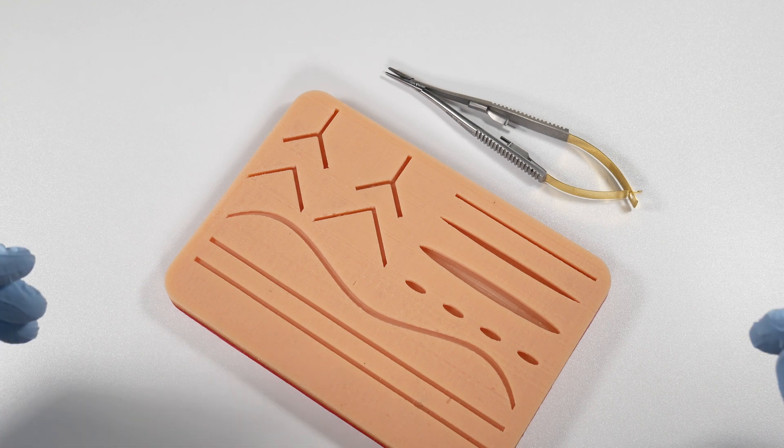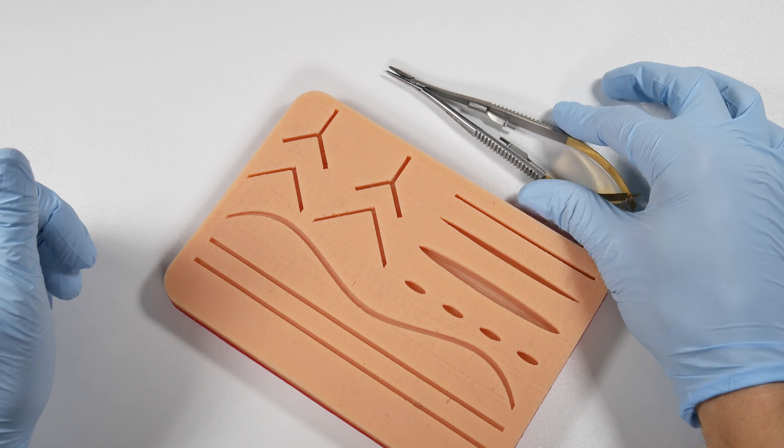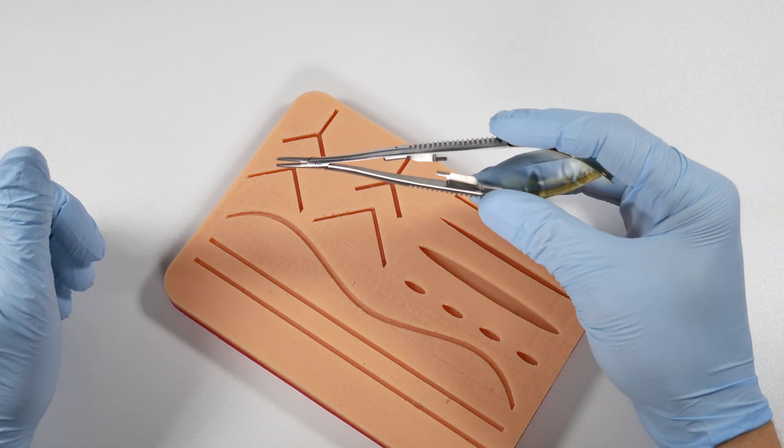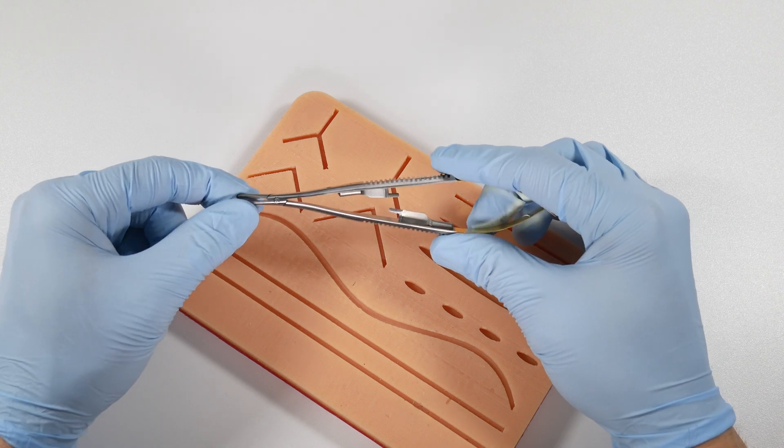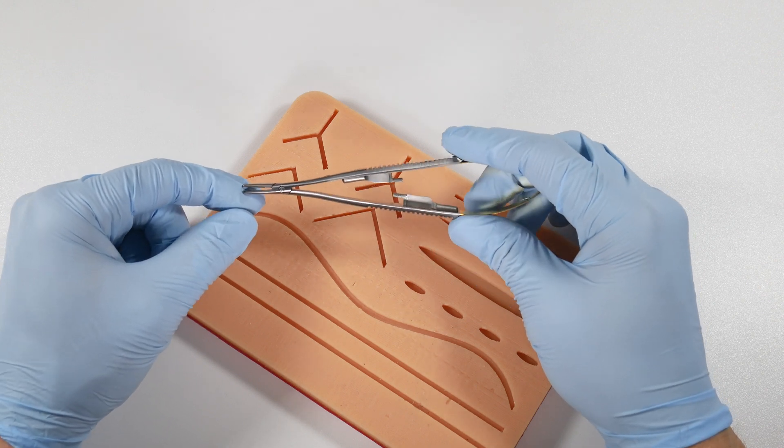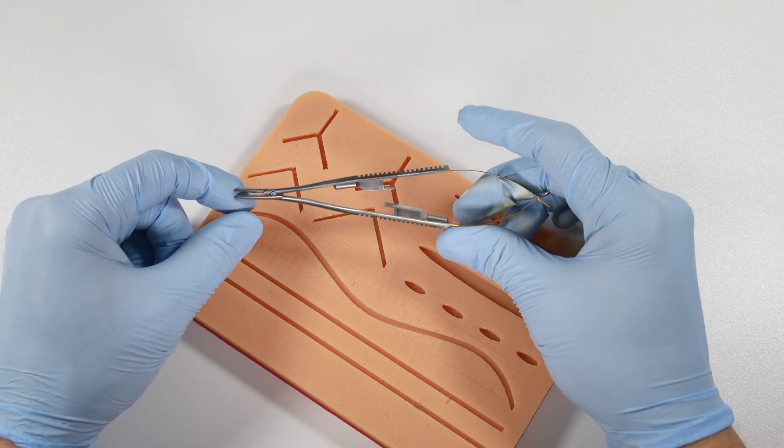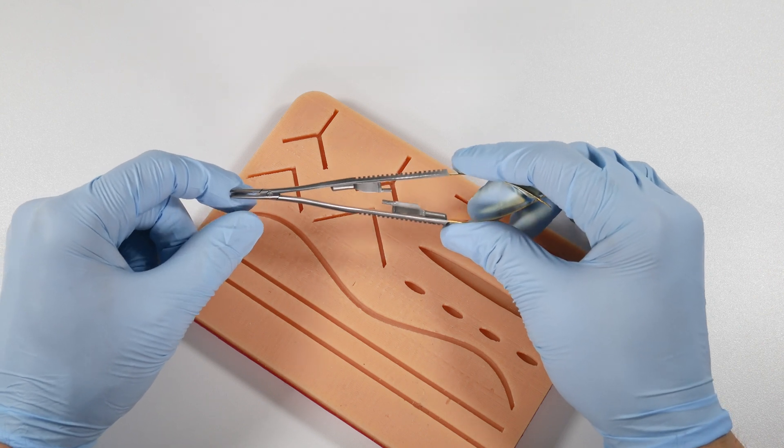Some of you may be looking at this thinking, what is this instrument? This instrument is a needle driver or needle holder called the Castro Viejo. This is a commonly used suturing instrument by periodontists.